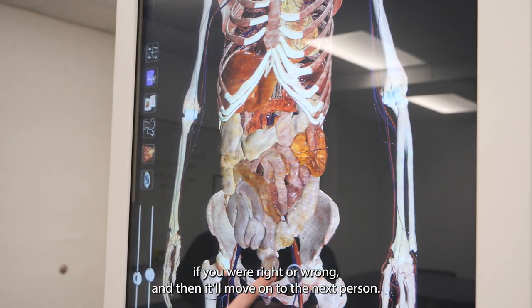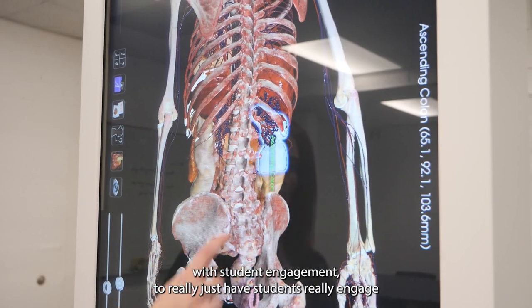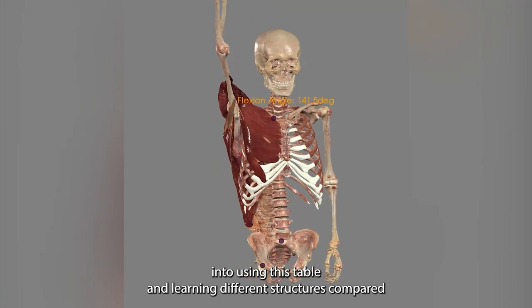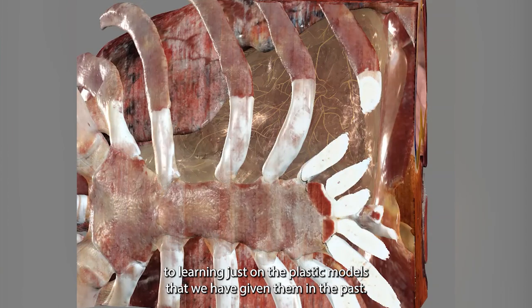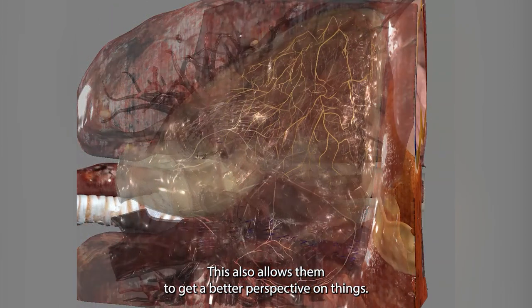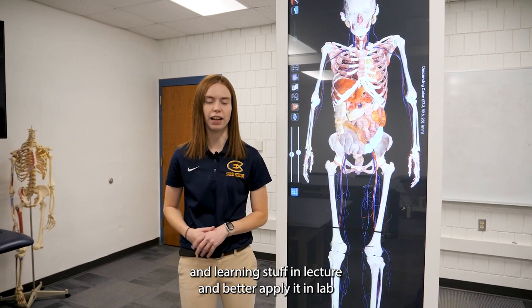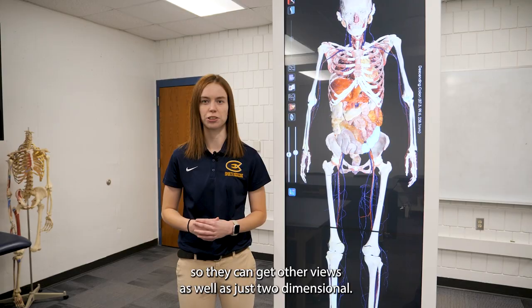The biggest reason we got this machine is to help with student engagement — to really have students engage with this table and learn different structures compared to just the plastic models we've given them in the past. This also allows them to get a better perspective instead of just reading the textbook and learning in lecture, and to better apply it in lab so they can get other views beyond just two-dimensional.